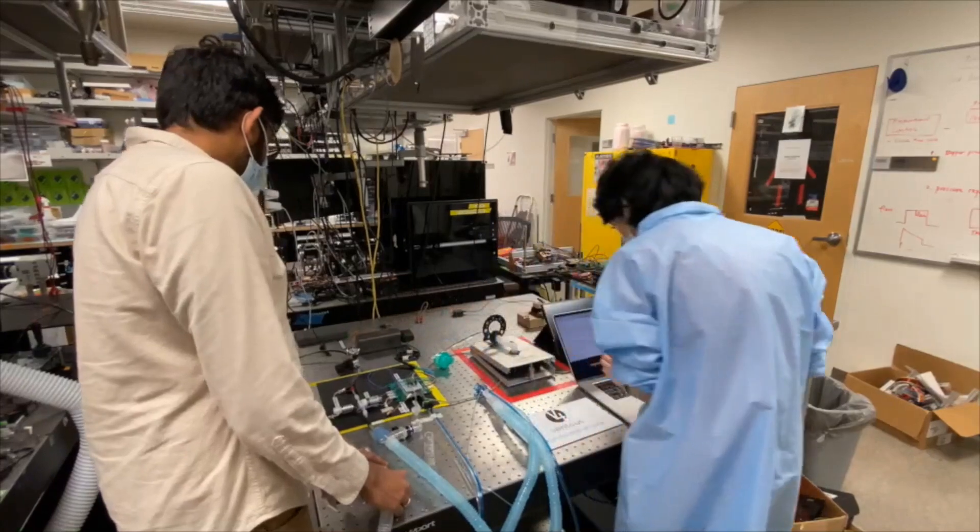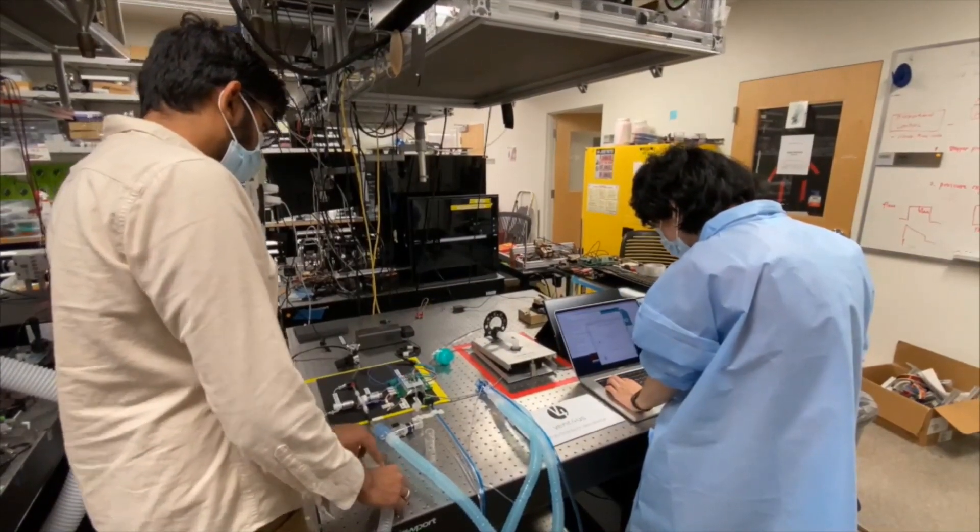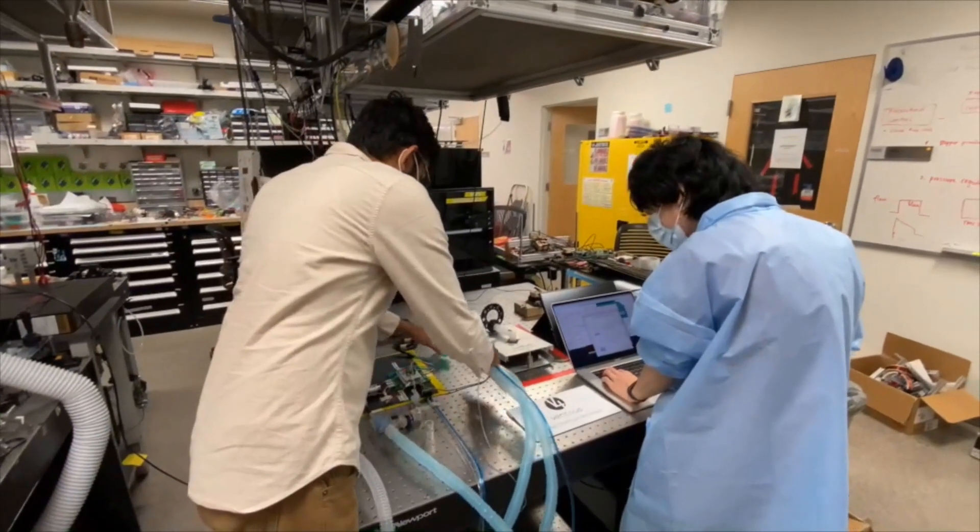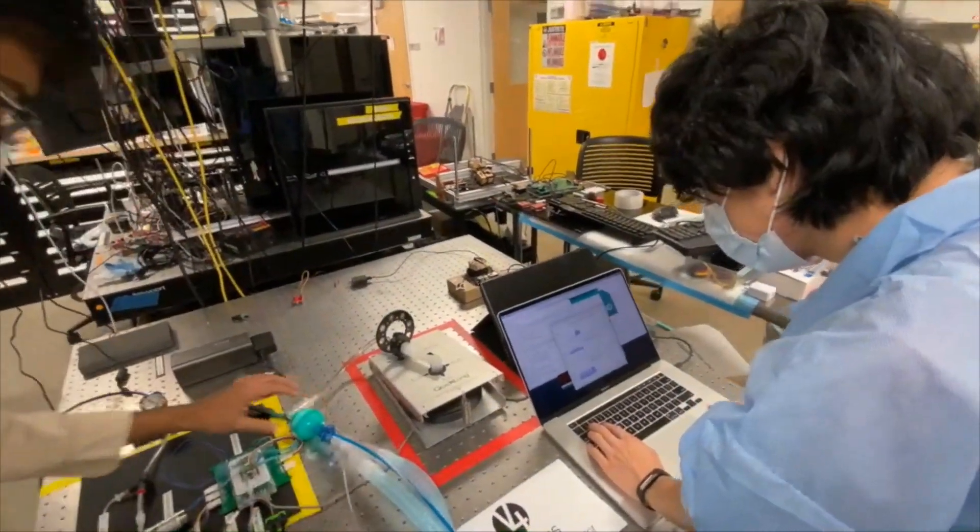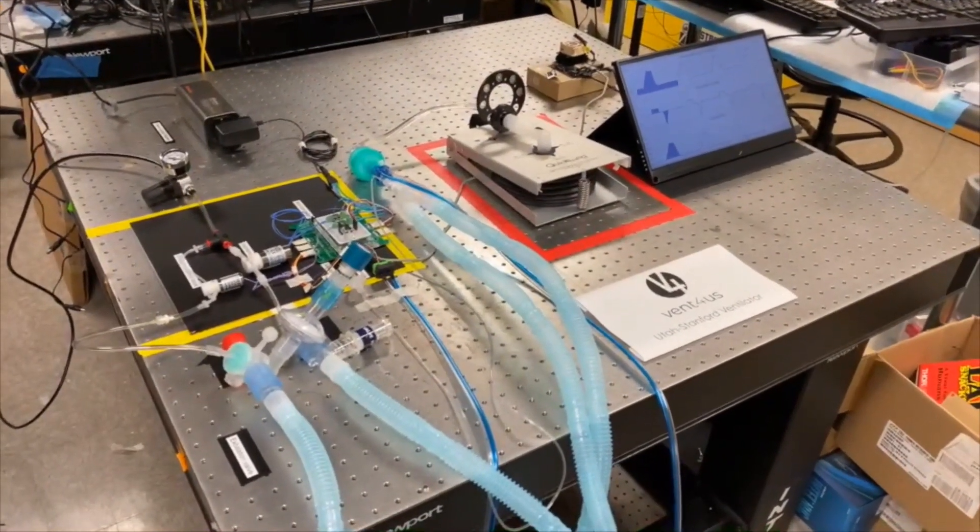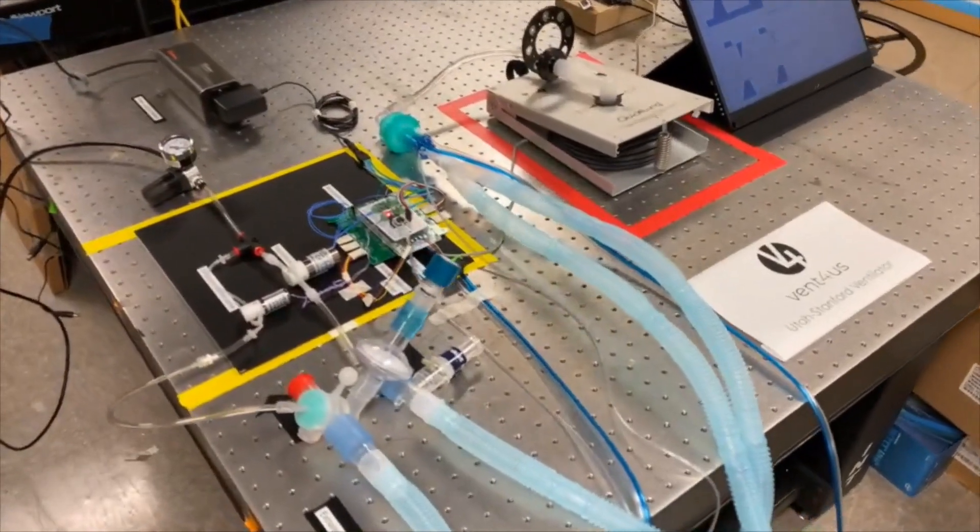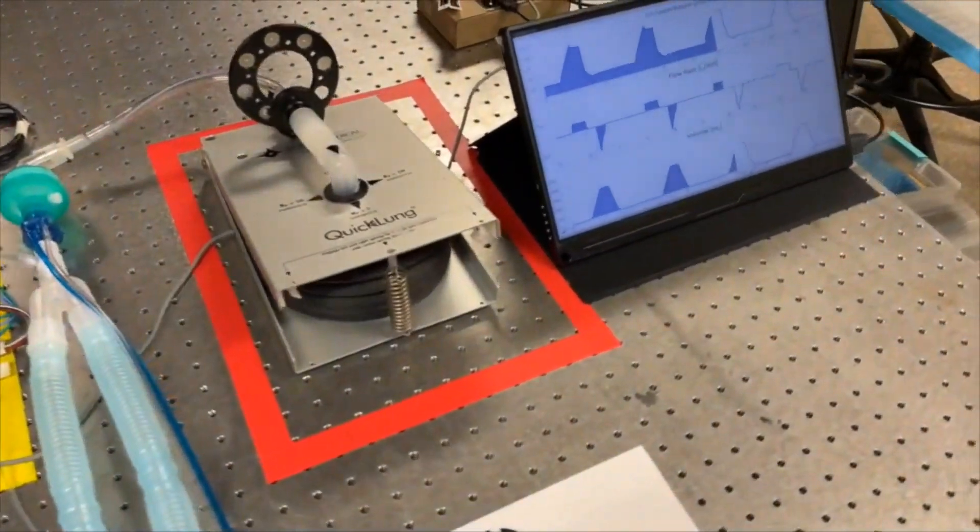Using these sets of parts, we've been able to build ventilators that have the capacity to deliver very classical modes of mechanical ventilation that clinicians often use, including volume control, limited version of pressure control, and assisted breathing.